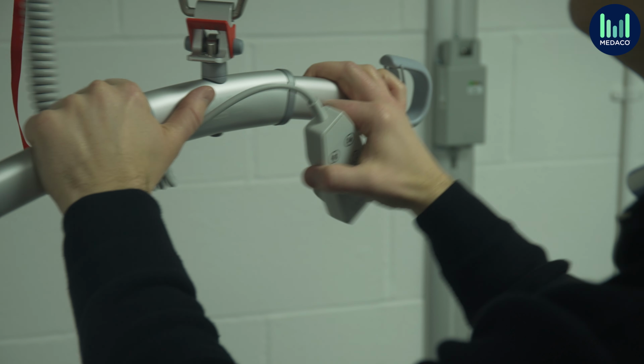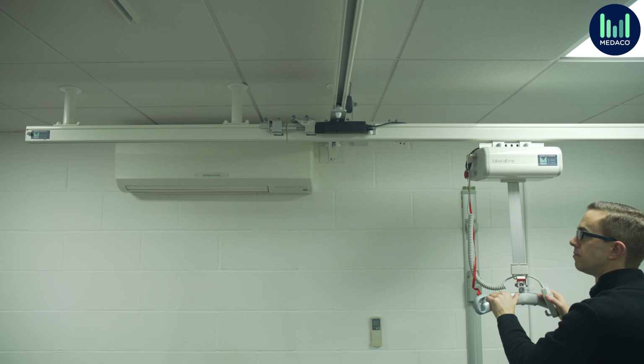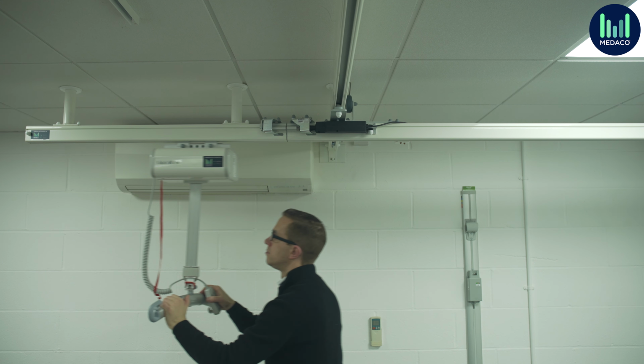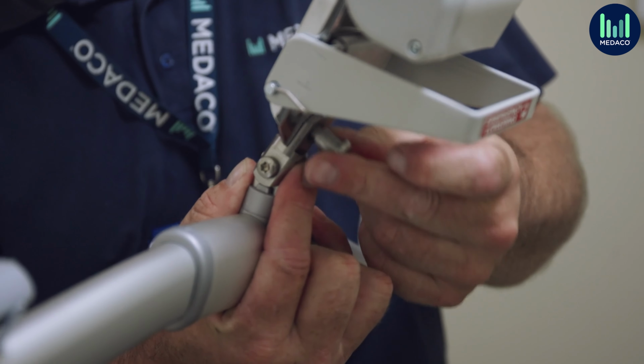An XY system, also known as an H-frame system, moves across an X and Y axis, and this allows for the service user to have the benefit from having the full range of movement across the room. With an XY system, you will need a minimum of 4 fixing points, and it will typically take a full day for an installation.